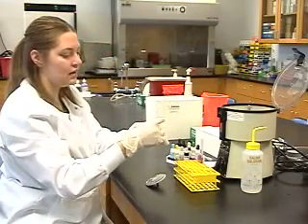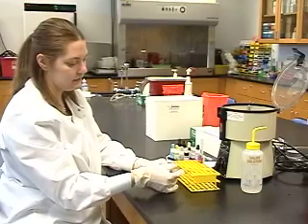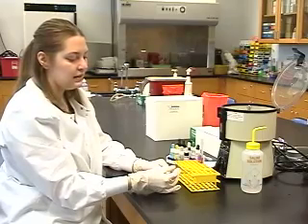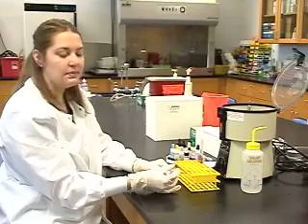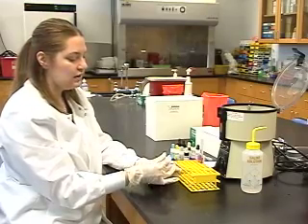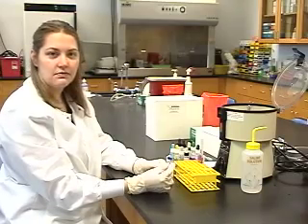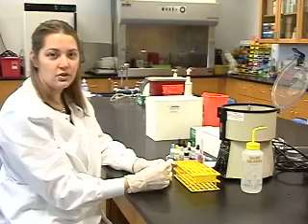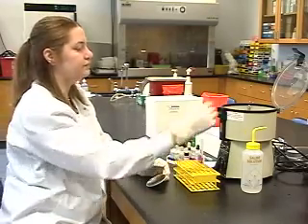Now we read the RH and the RH control. We have agglutination in the RH tube. This means that there are RH antigens present on the red blood cells. Therefore, this patient is RH positive. There is no agglutination in our RH control tube. We always expect this reaction to be negative. If you were to get a positive reaction in your RH control, your testing would be invalid and everything should be repeated.